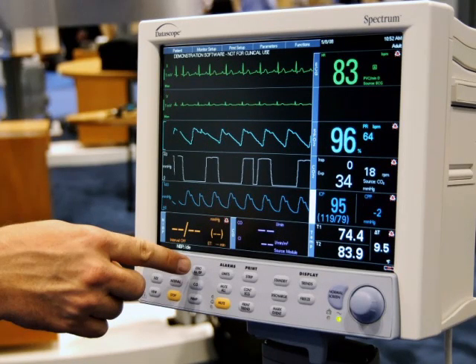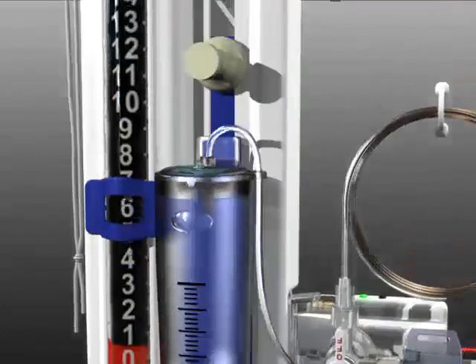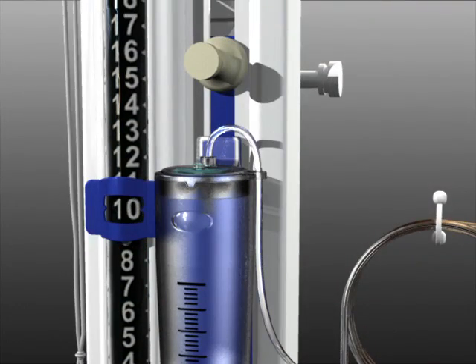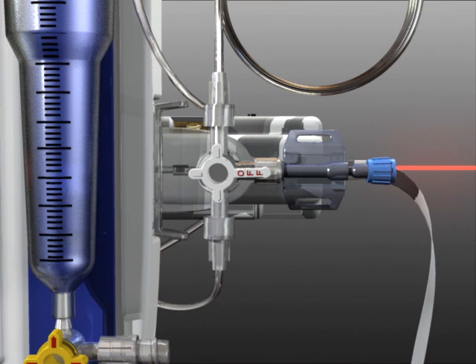The pressure transducer is now zeroed to atmospheric pressure. Return the drip chamber to the ordered setting. Rotate the main system stopcock off to the transducer and on to the patient, allowing fluid to flow from the patient to the drip chamber.